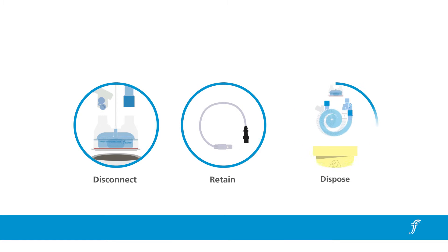Before cleaning, the breathing system is disconnected from the FL9000 and the ventilator. The heater wire adapter and the temperature probe leads are removed and retained, and the system disposed of as contaminated clinical waste.